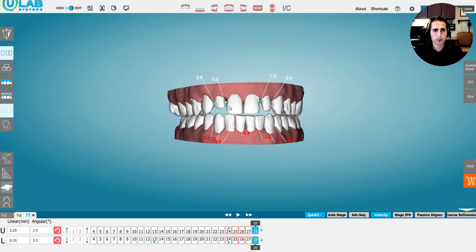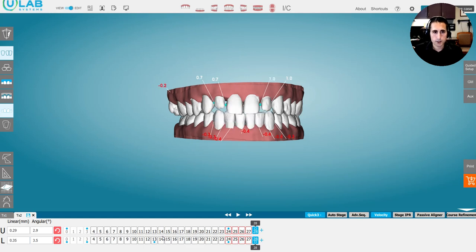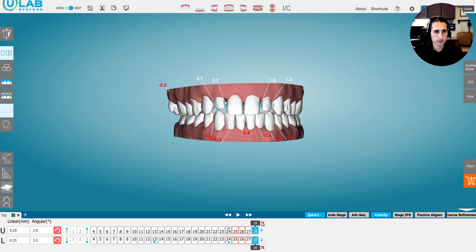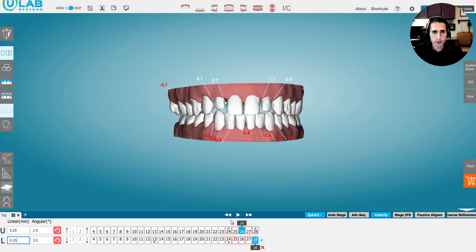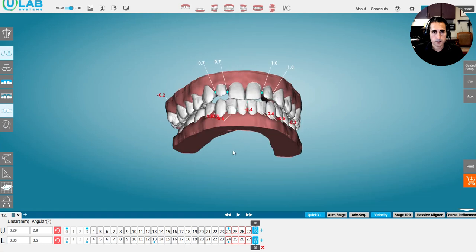And so that's how you would create that. I don't know how long that took. But that's the chairside refinement process. So I'm going to go ahead and delete this now just so I don't mess up my case. But we'll go back and we'll look and we'll see. What is this, 0.29, 0.35? I'm curious. Oh, look at that. Yeah, that's the exact velocity that we used. So that was kind of lucky. But yeah, so again, there's the actual chairside refinement you can do. You can see the mesial crown tip on both sides. It looks like it's what we did. And you can see the overexpansion there.